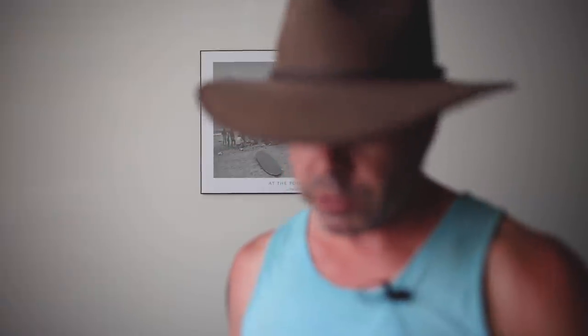Well Janet, I'm here today to tell you exactly what's going on and it's not your fault. In fact, it's ResMed's fault. This AirSense 10 water chamber is a faulty design, and today I'm going to show you why it's a faulty design and also show you why they've changed the design when they moved to the AirSense 11.